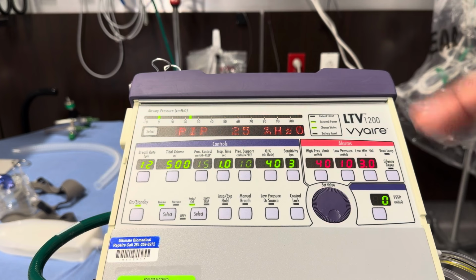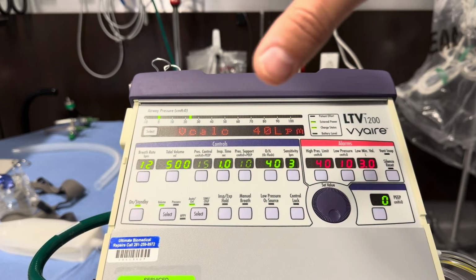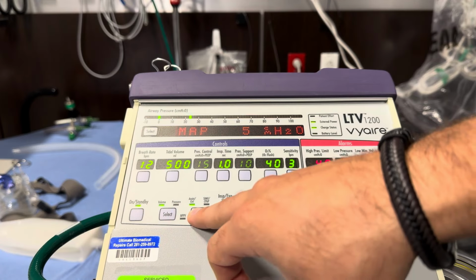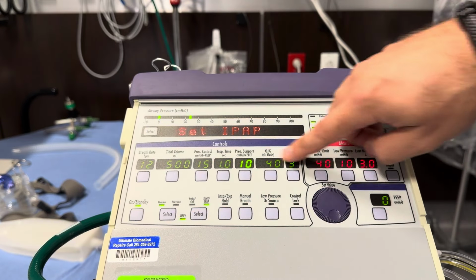Okay, so for a BiPAP, this will be used for someone that has a decent respiratory drive. They're protecting their own airway, probably wearing a mask. You'll use that AC control for someone that doesn't have good control of their airway. What we're gonna do is set this all up before we actually hook it up to the patient, because remember it defaults in the assist control. So before you hook it up to their mask, we're going to go over to the NPPV, it's flashing, until only one thing is highlighted.